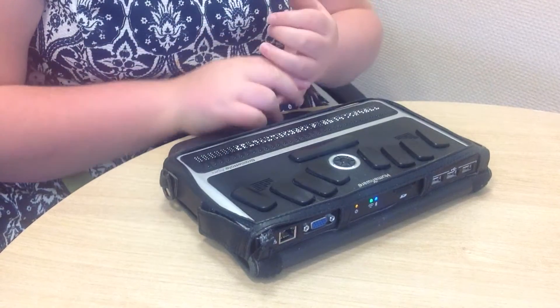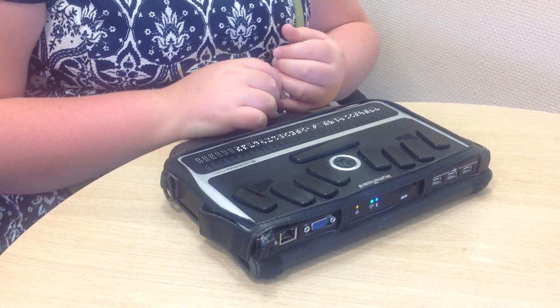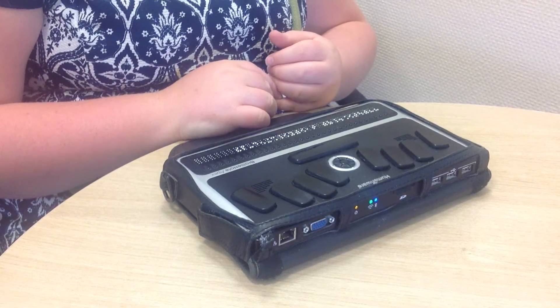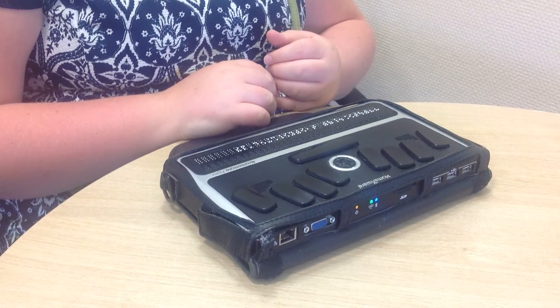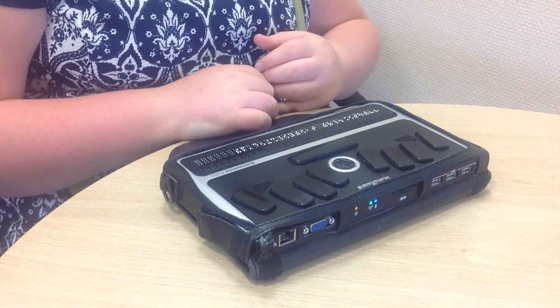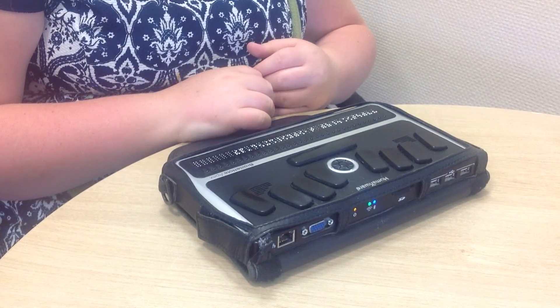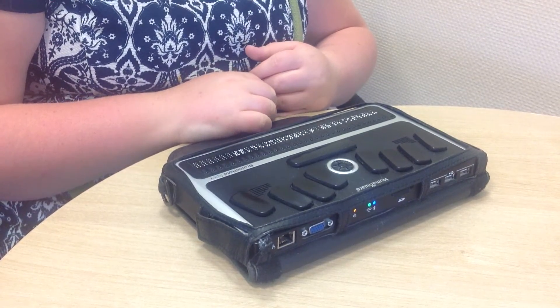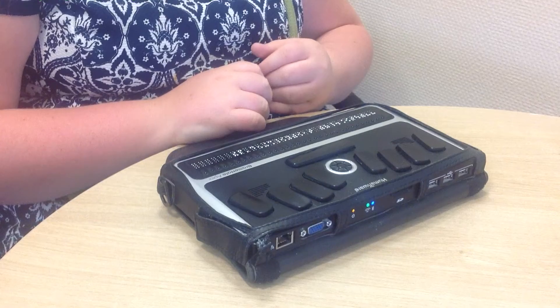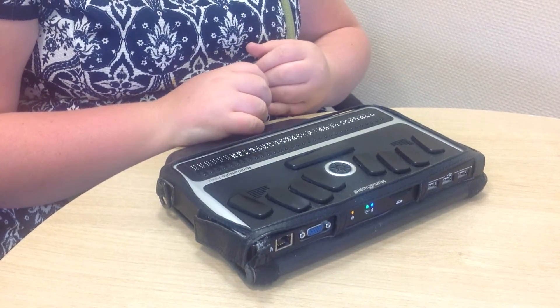So that means on my BrailleNote itself, the voice will be set to elderly female. But on the internet, for certain links, headings, and different coding compared to the normal BrailleNote, that will play in a different voice, which might help me decipher things a bit easier.